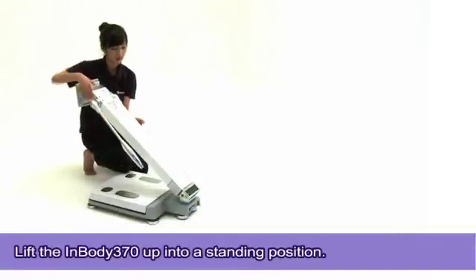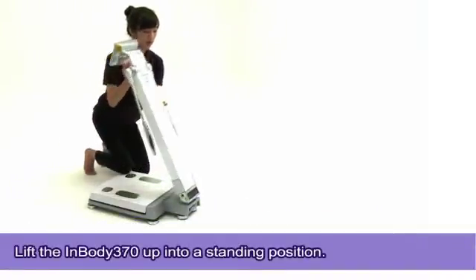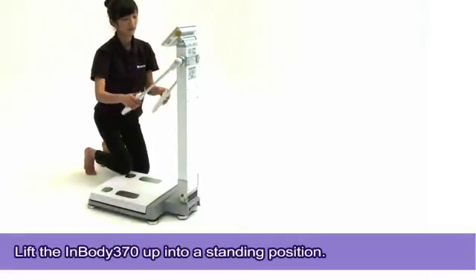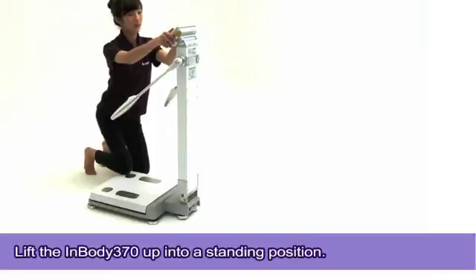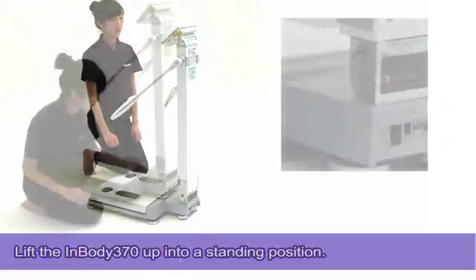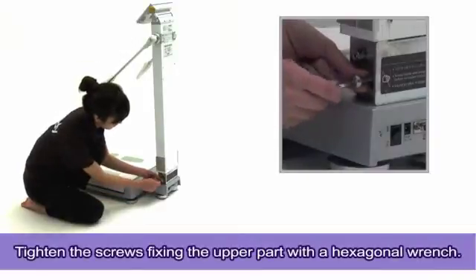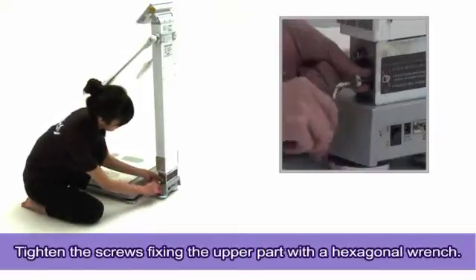Lift the InBody 370 up into a standing position. Tighten the screws fixing the upper part with a hexagonal wrench.